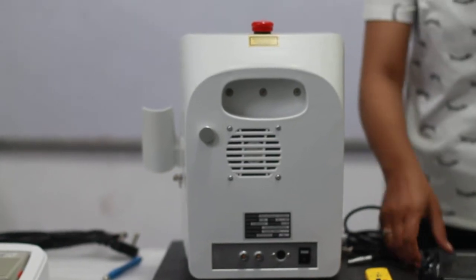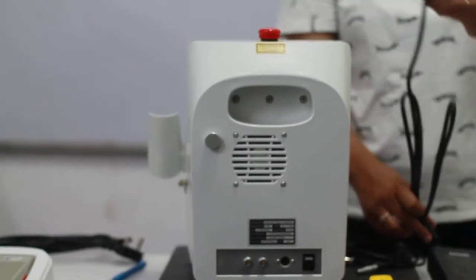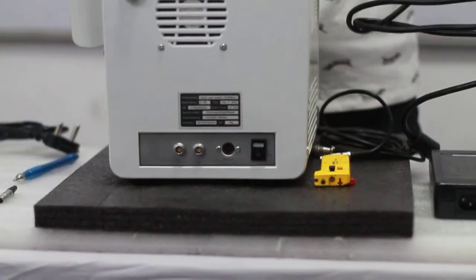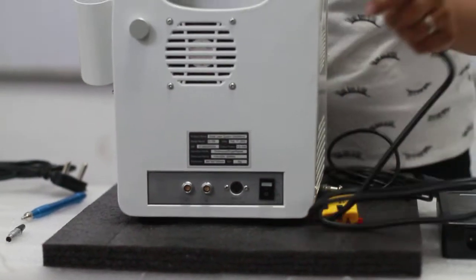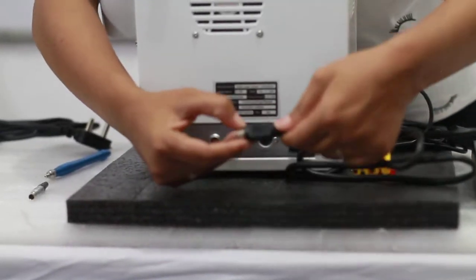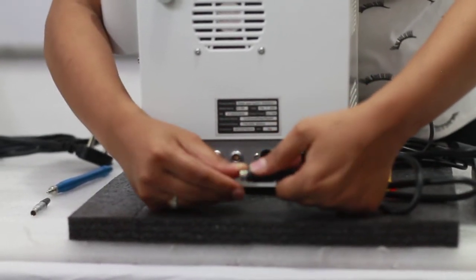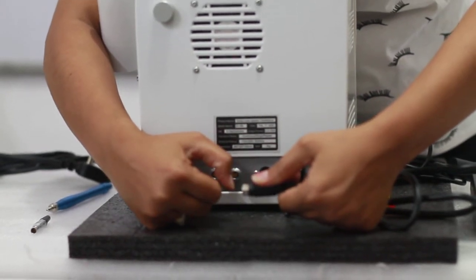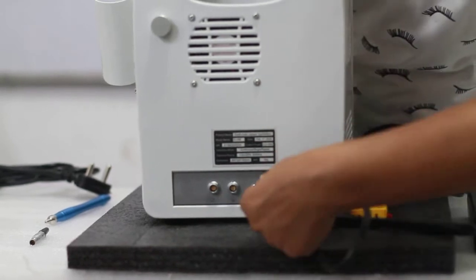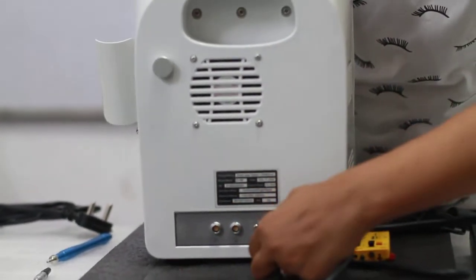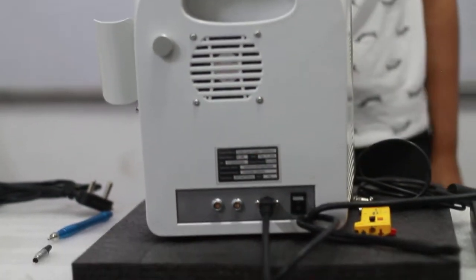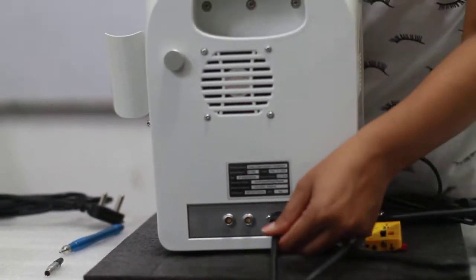So first of all, we will see how to connect the adapter. As you see on this adapter, can you see this arrow? You can just slide it off before placing it or when you are taking it out. While inserting this, just slide it on towards your side and you can insert it easily. So this way your adapter is connected.